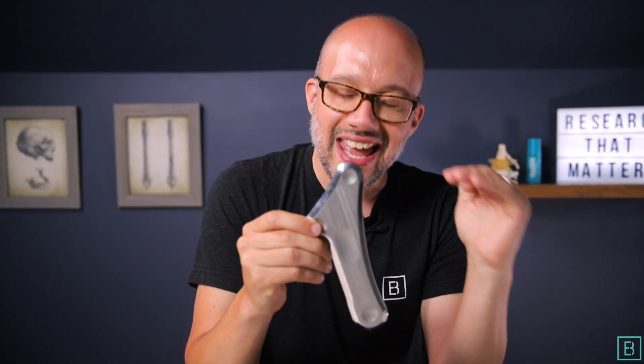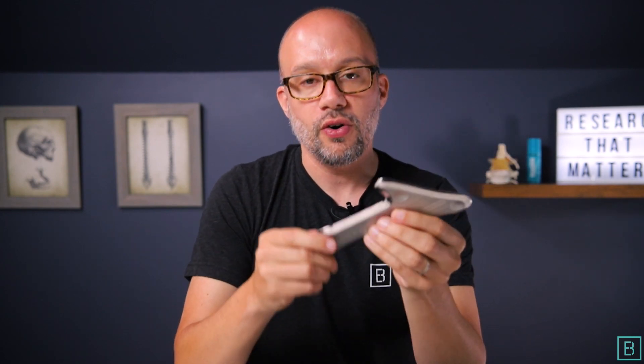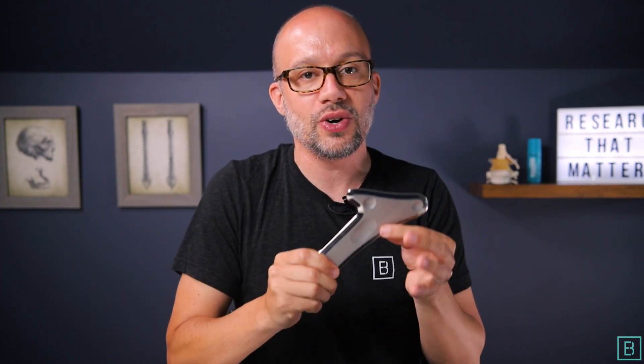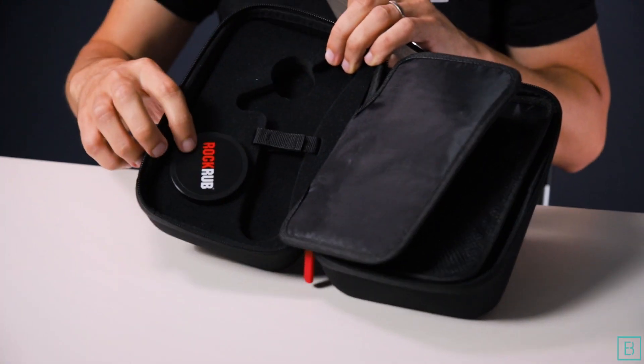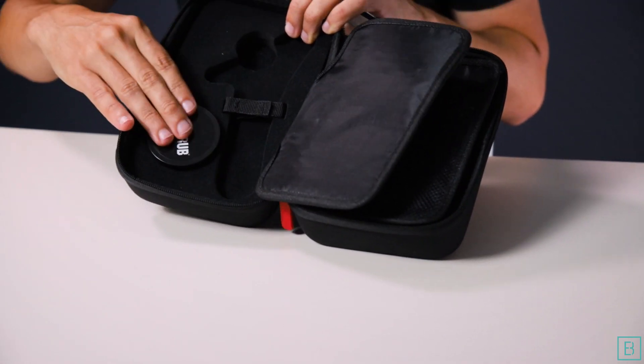People love it and it saves your hands, your wrists, your thumbs. So Mohawk — awesome tool, well balanced, definitely check it out. As we dive further into the kit, because it's not just the tool when you get Mohawk, you will get a place for RockRub. So if you need any rub, ointment, or solution, you have a place for it right here. This helps keep things super convenient when you're on the road or in the clinic to have everything you need in one location.